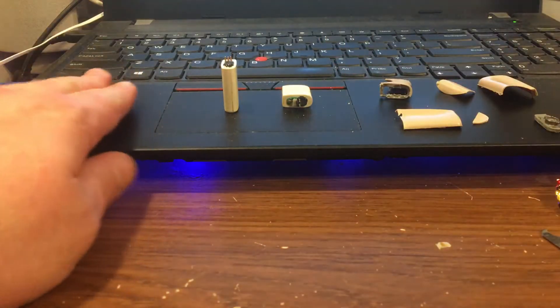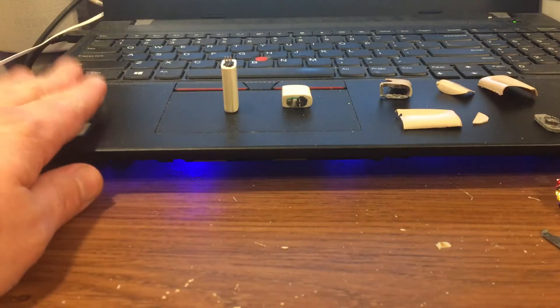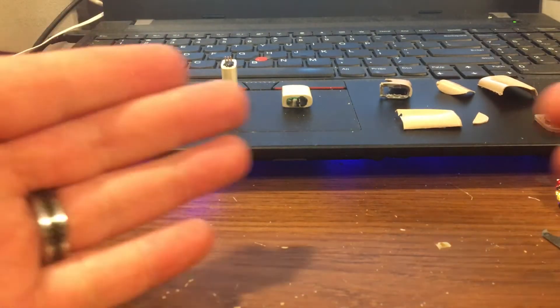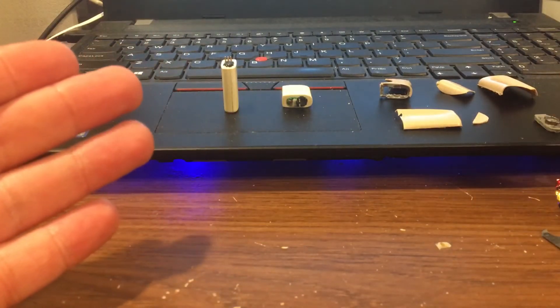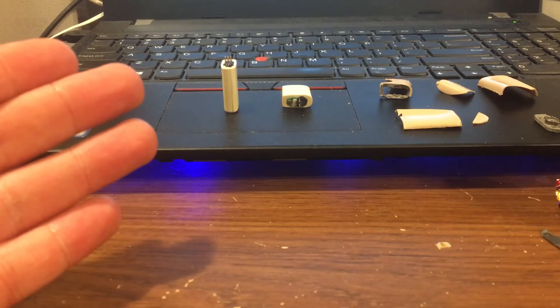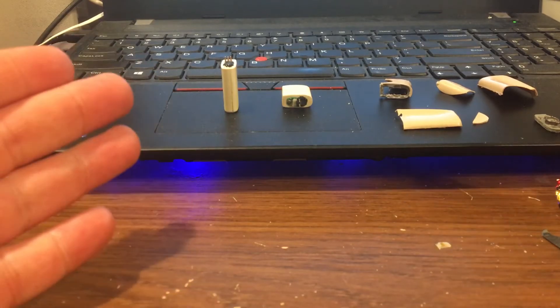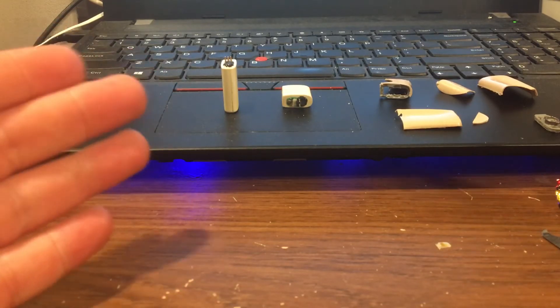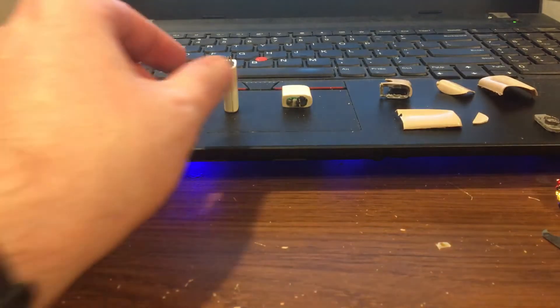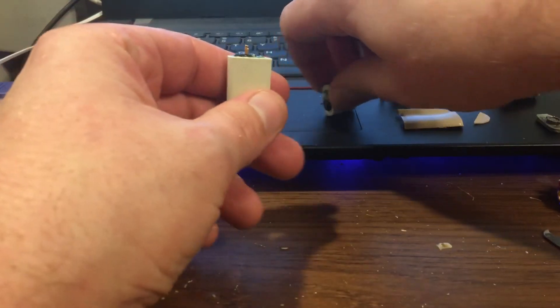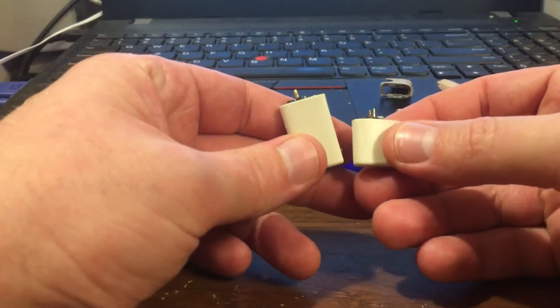I'd like to show you this stuff, not including this Bitcoin, this computer. Everything that you see here costs over $500. That's right, all of this cochlear implant battery is $500.